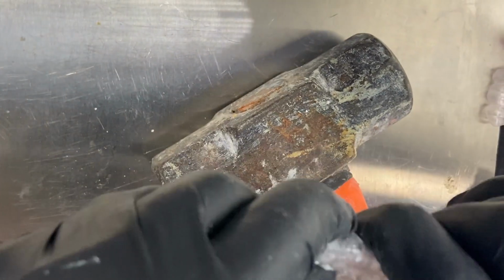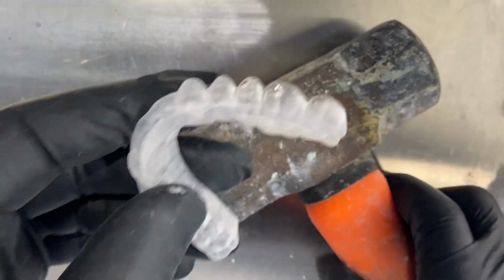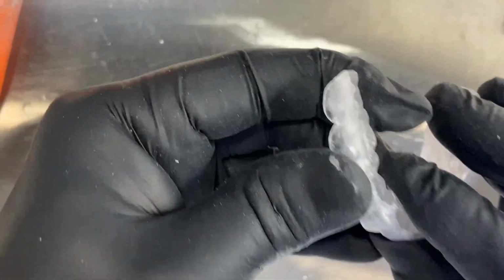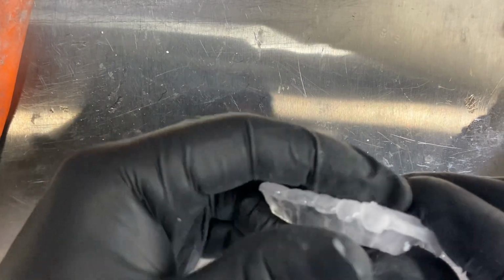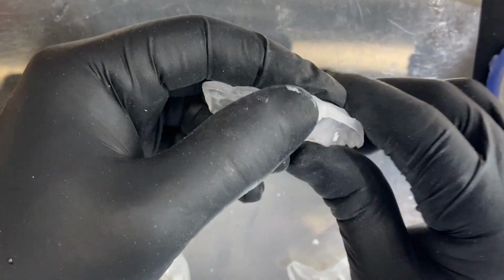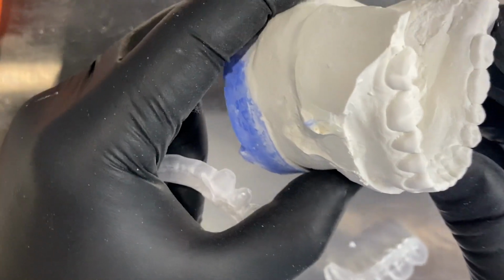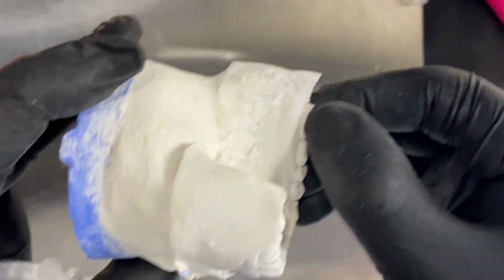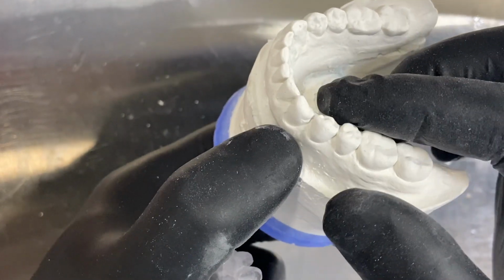So it's important that you take these considerations. The decision to choose between a PMMA material and a nylon material can be based on what you have to rely on, but it also depends on the quality of your impressions. If you have teeth that are really short, with lack of retention, your impressions need to be perfect because the only little retention that we're going to have is going to be the height of contour. And sometimes we have occlusal anatomy that is really poor.